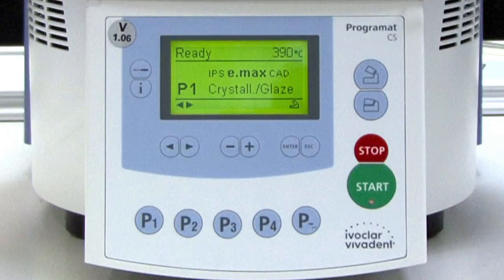Once the limit of a value range has been reached, the value can no longer be adjusted in that direction. The escape key is used to close any error indication and/or to leave any screen. The enter key is used to select settings or confirm entries.